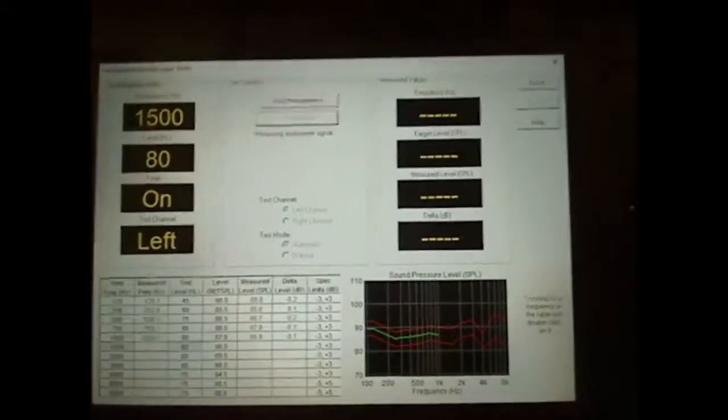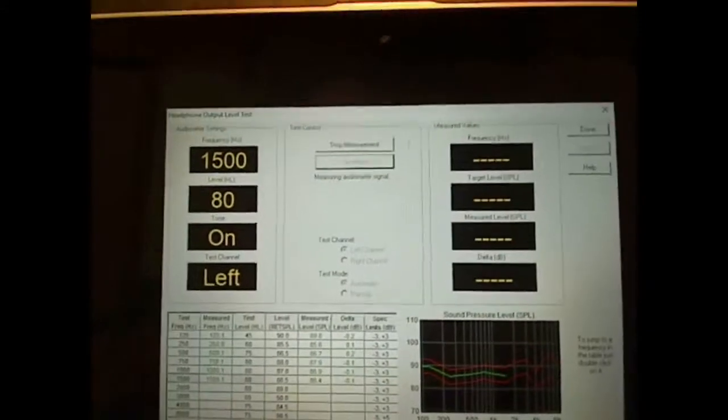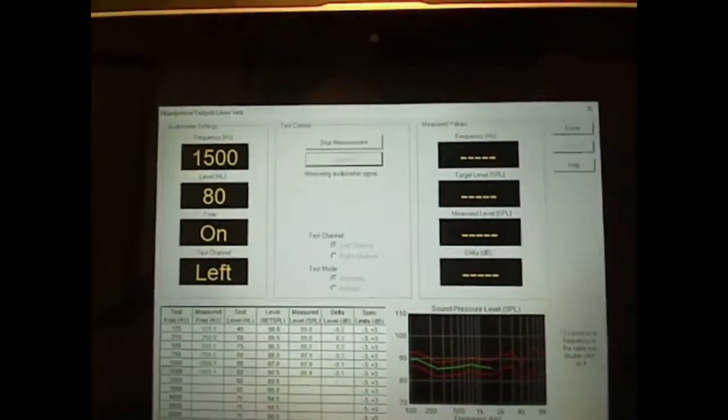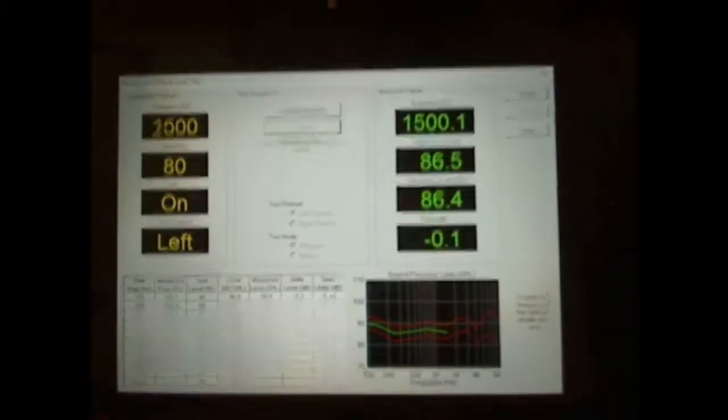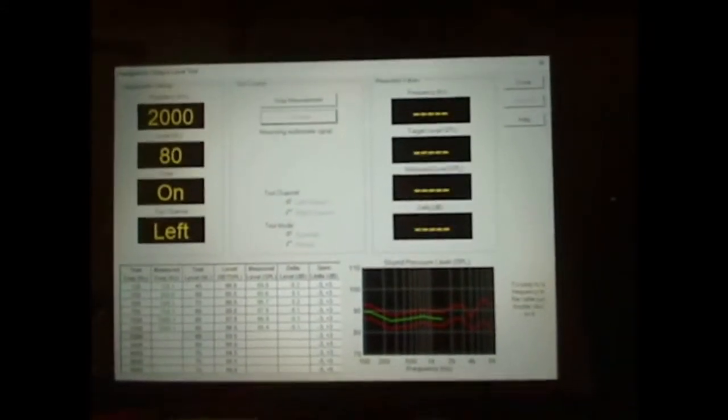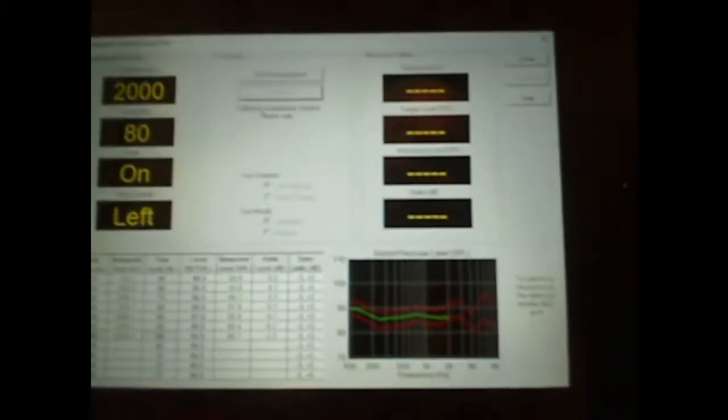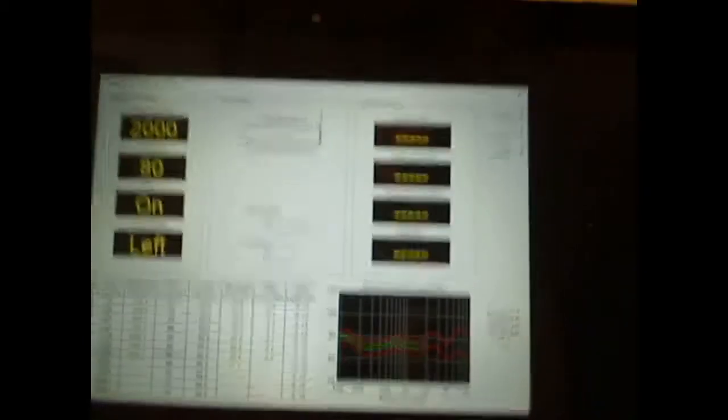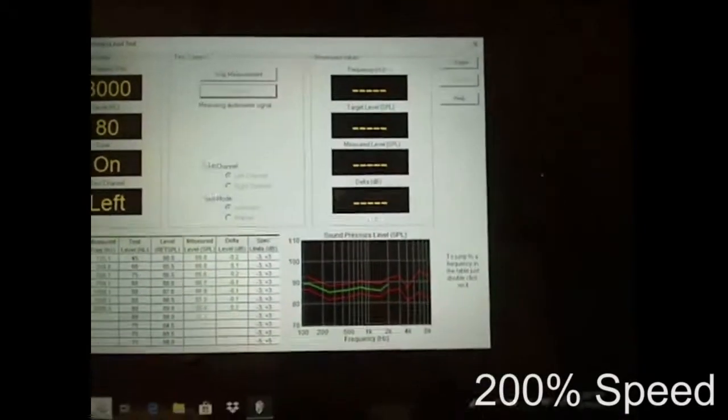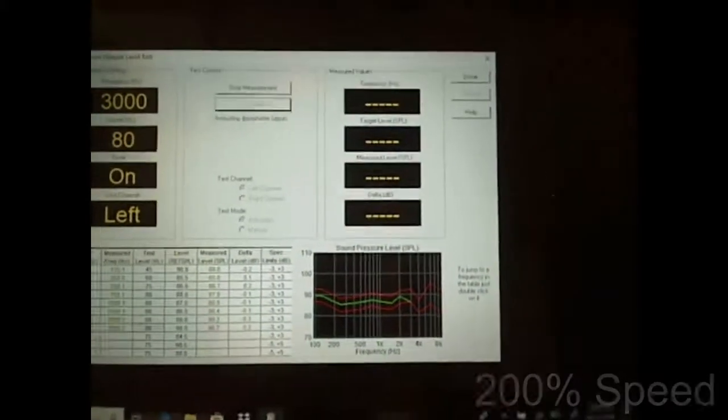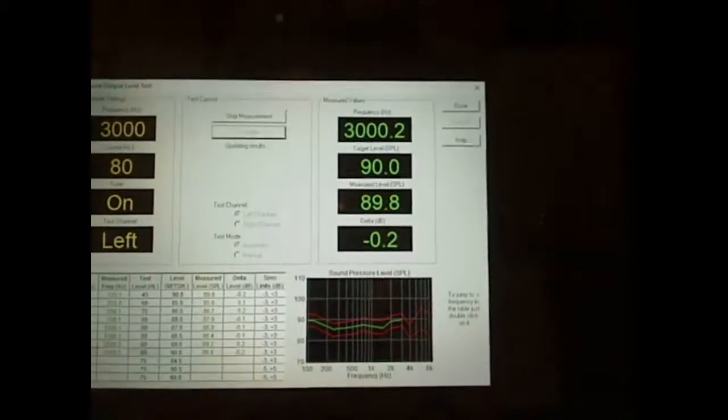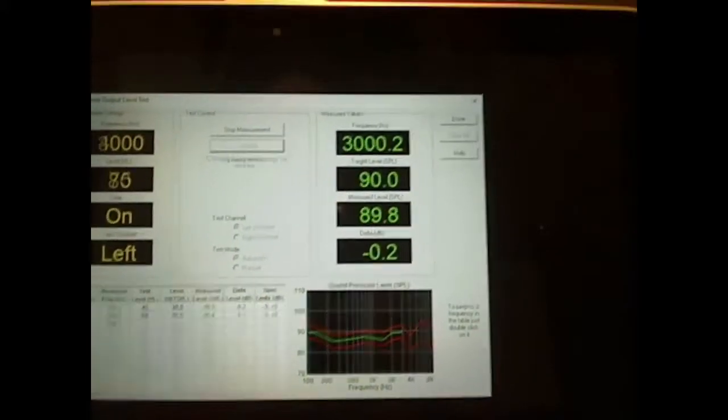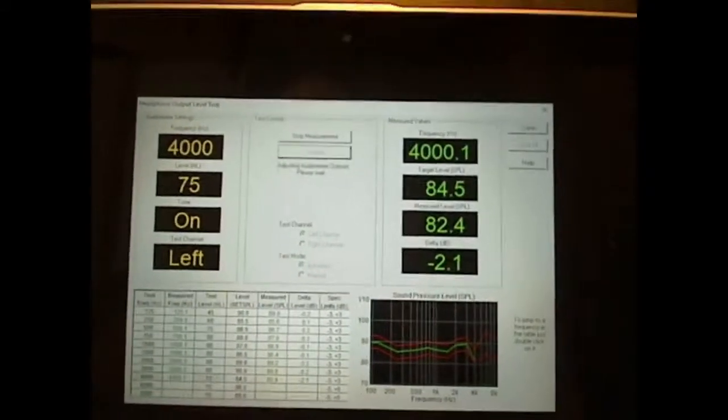That pattern of what that audiometer is capable of doing is set up in the software. We know that that audiometer, if it does warble, it will have it on there. I don't know if it does or not, but we're going to find out. There you see it was out of spec. Brought it in. And that audiometer is calibrated.